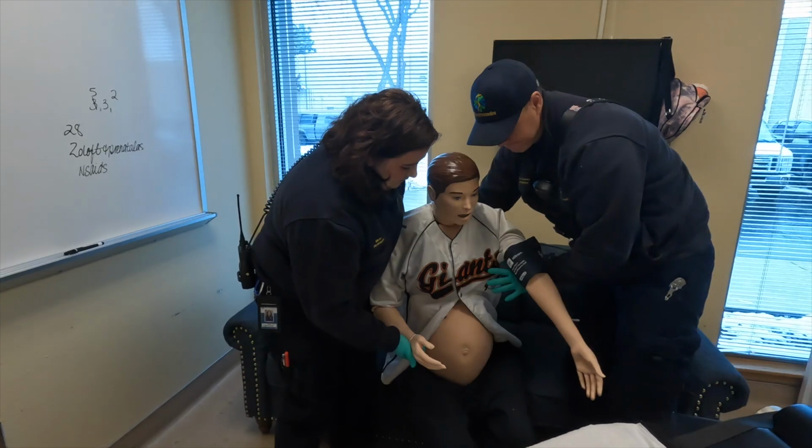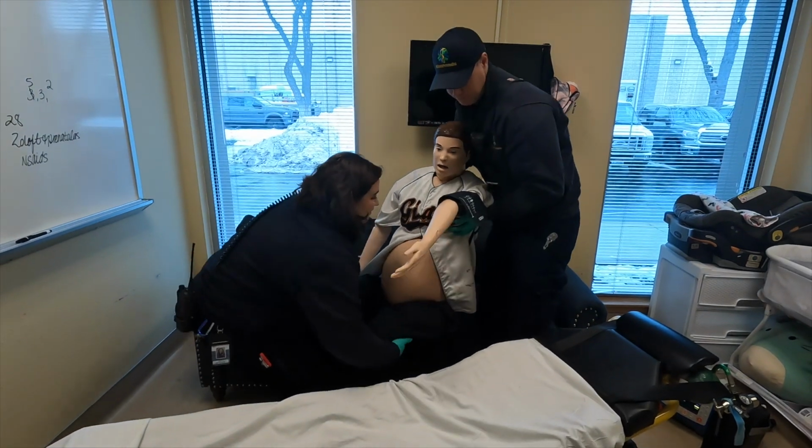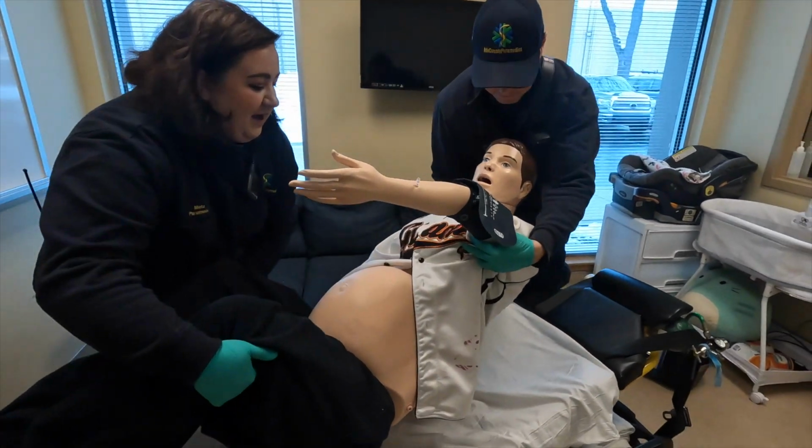This mannequin's body and extremities move and articulate more than any of its predecessors, allowing for easier assessments and more realism. The mannequin can be moved to whatever position you feel is necessary. This includes common birthing positions or even the knee to chest position. Please use care and caution as you would with a real person. Just like in real life, please coordinate patient movement plan with your partner to avoid any type of lifting injuries.